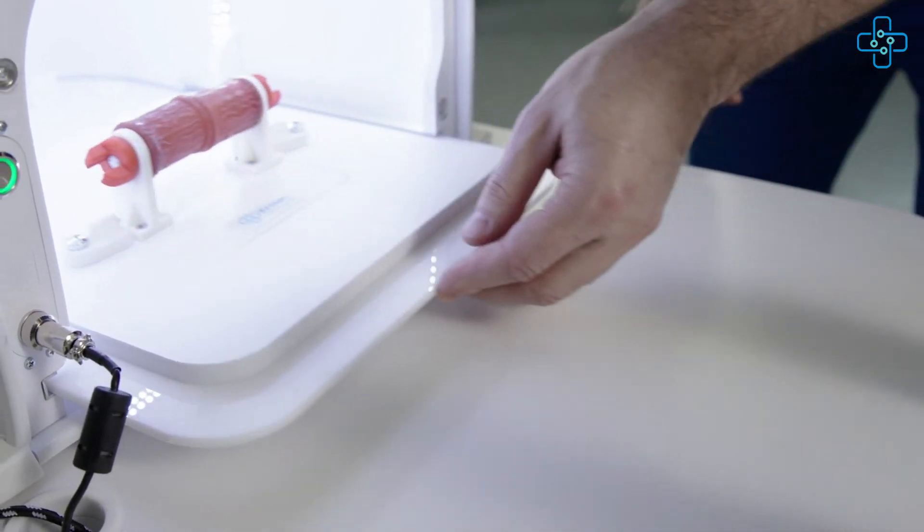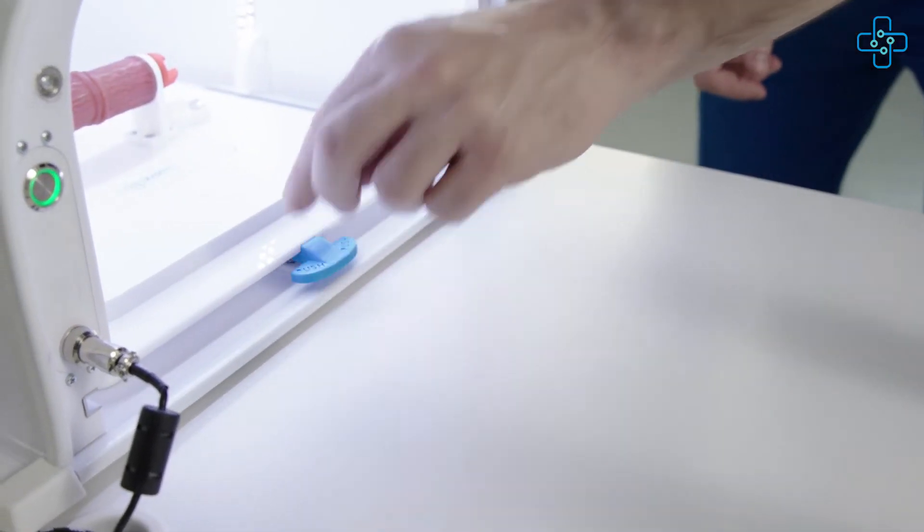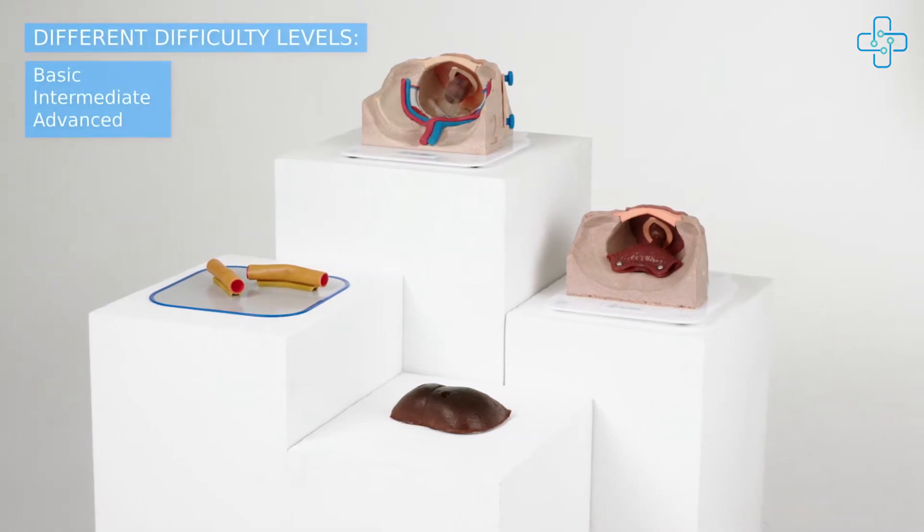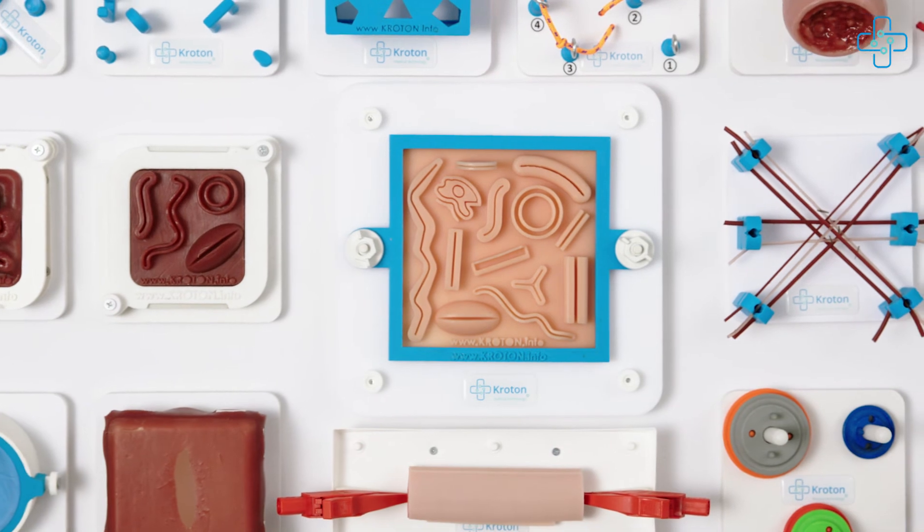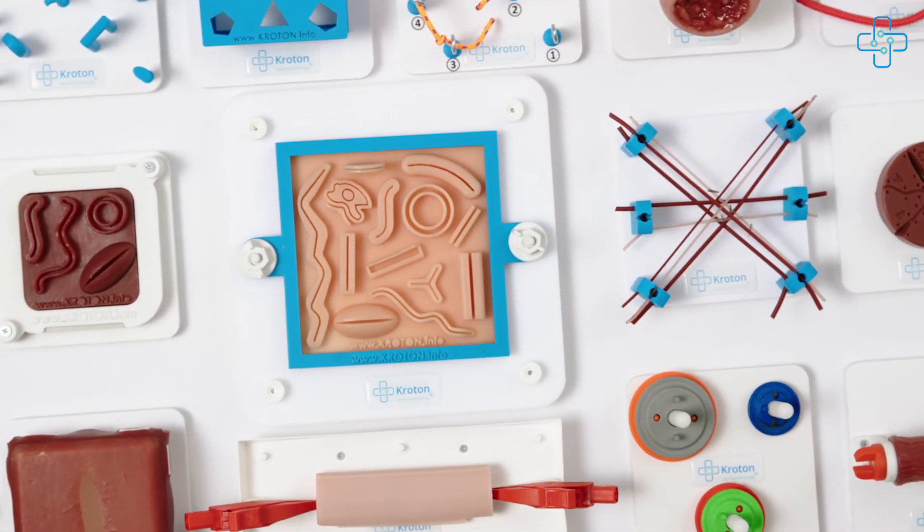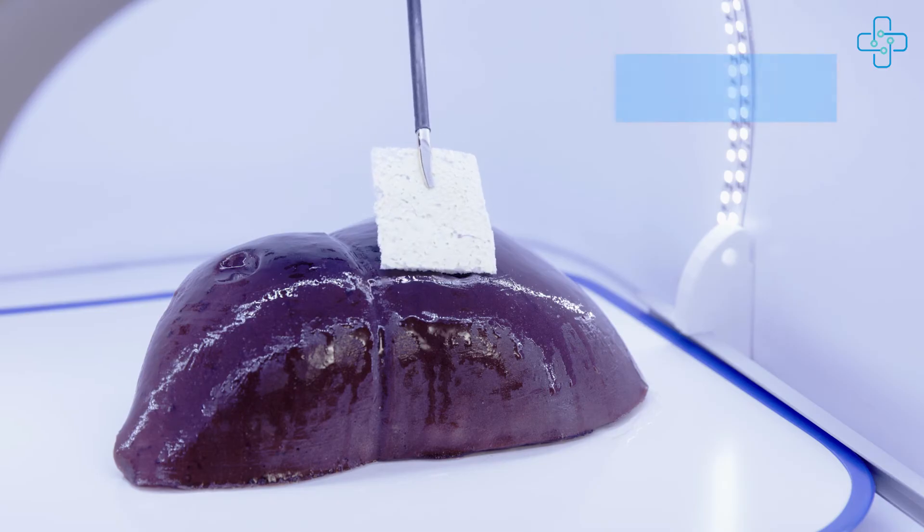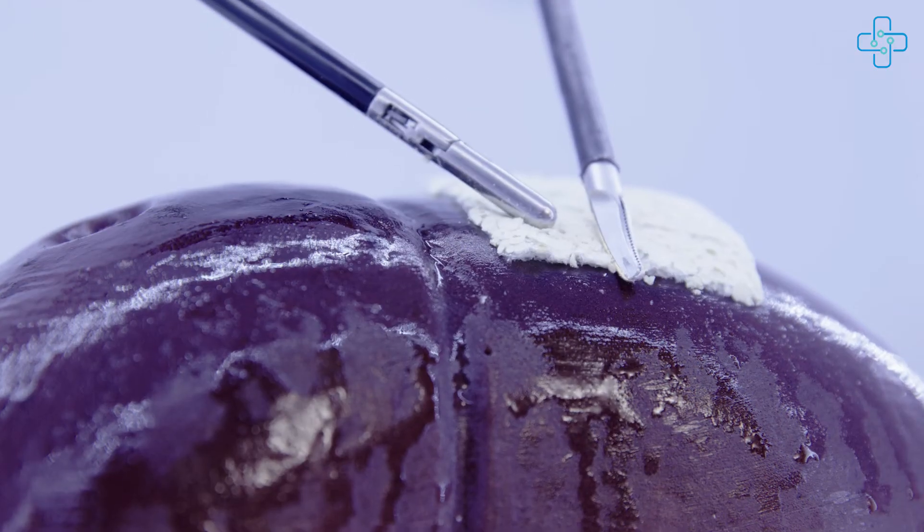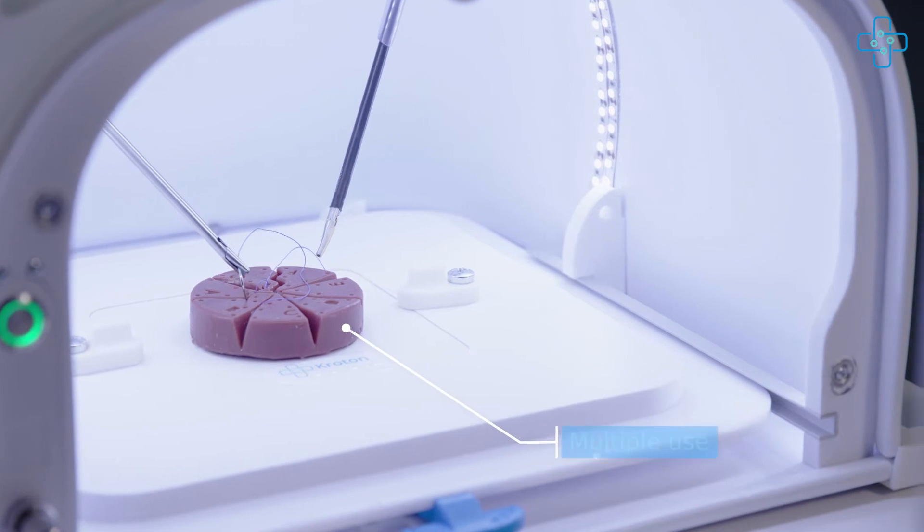We use special polymer training inserts of different complexity levels to train doctors for a variety of procedures. We hold the most impressive portfolio of uniquely manufactured inserts in the industry. Our inserts perfectly imitate human tissues, their durability allowing for long operation and repeated surgical training.